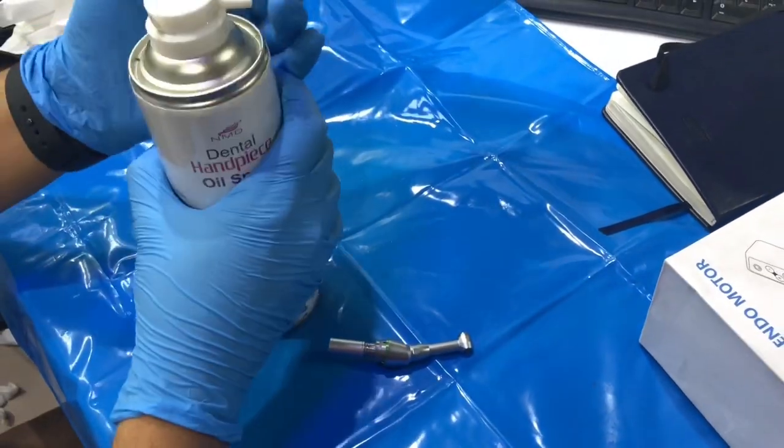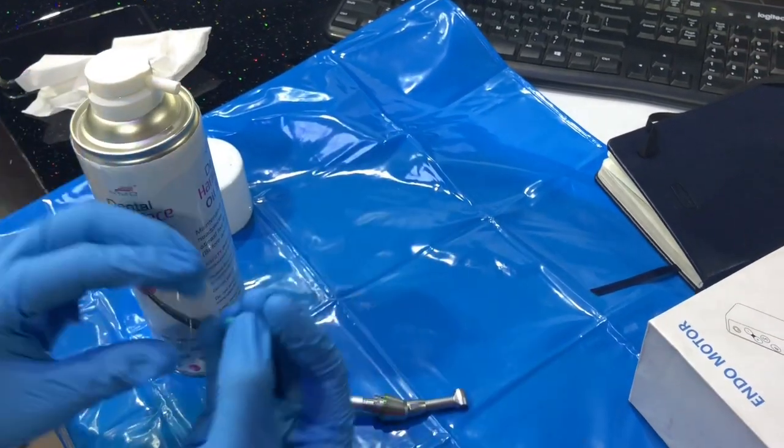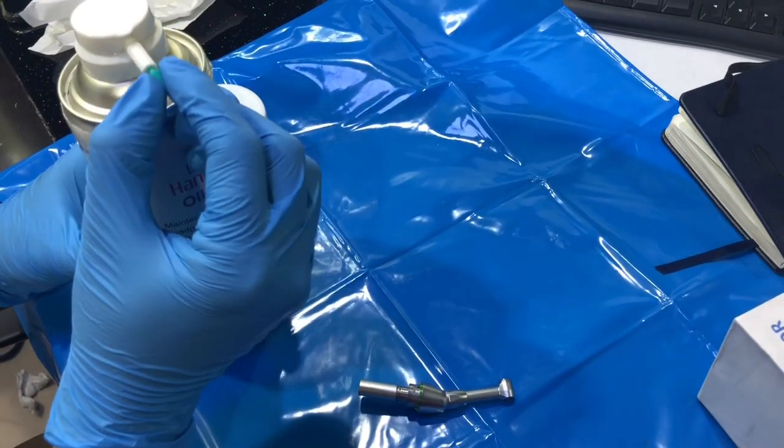The best thing about the handpiece NMD handpiece is that we've got a small pointed lever which goes inside any sort of slot for the air, and you gently put it inside.